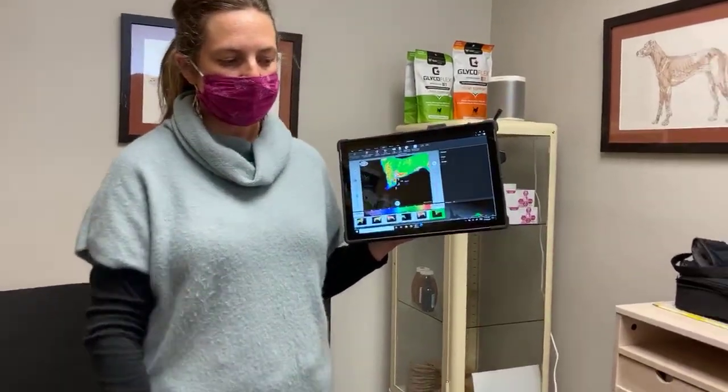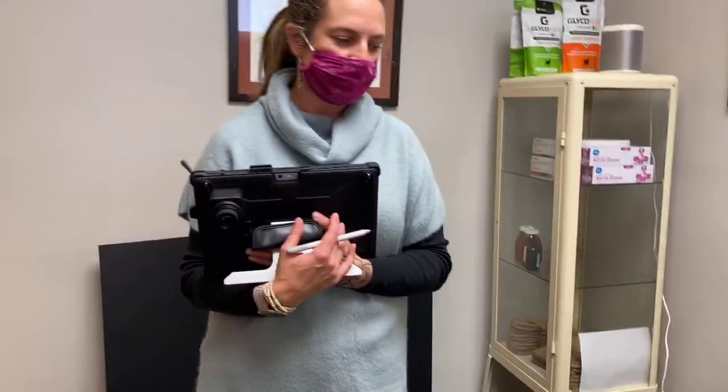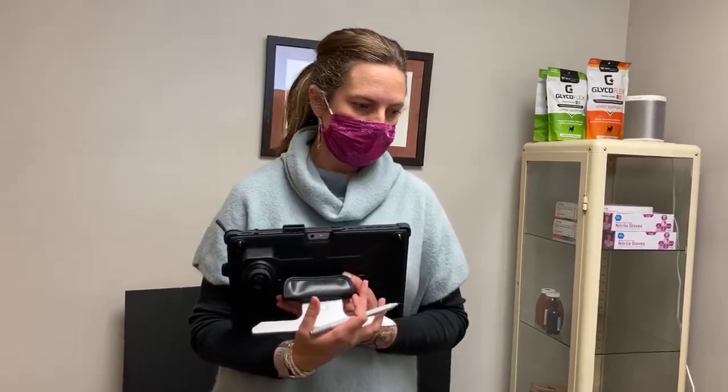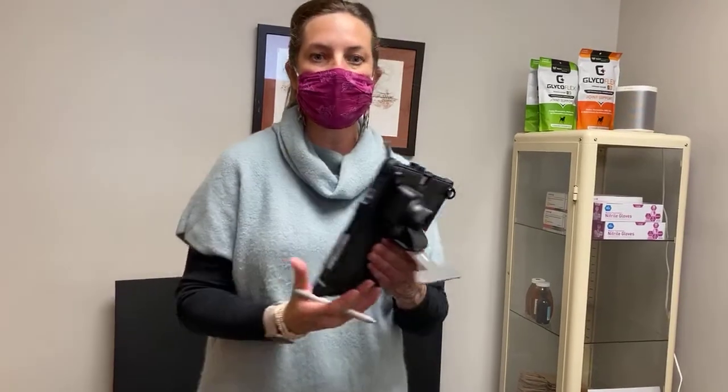It's not too stressful and it's very non-invasive, which we love. It's pretty easy and pretty quick — Sam, it usually takes no more than 15 minutes for a complete exam, and sometimes we'll just do little check-ins on body parts. As we know, it's all connected, so we want to check that out. If anybody has any questions, write them in the comments, or email us at dreamteam@sleepydog.vet, or give us a call. Our next Facebook Live is going to be on how animals communicate pain to us — we'll put that date up soon. Thanks everybody, have a great day!